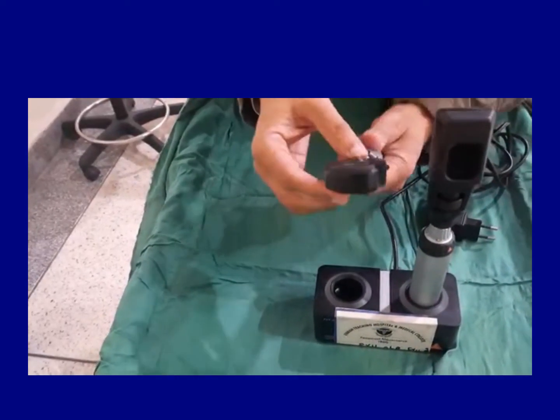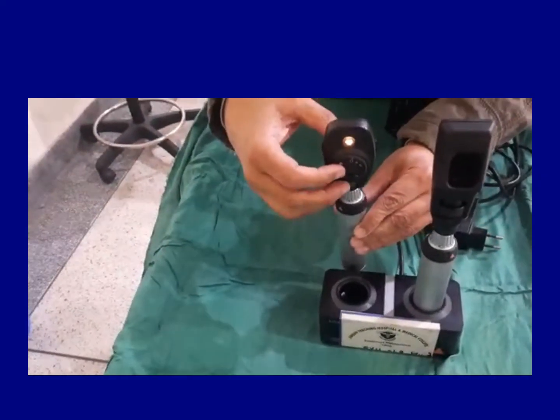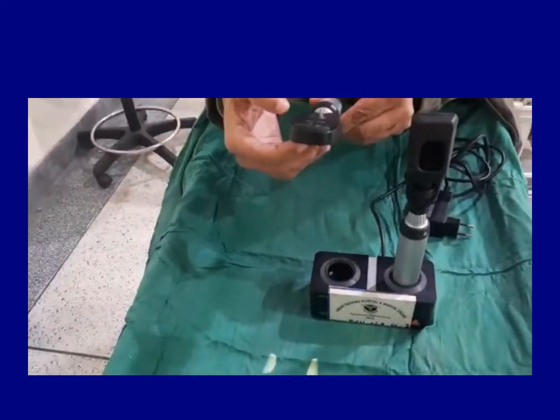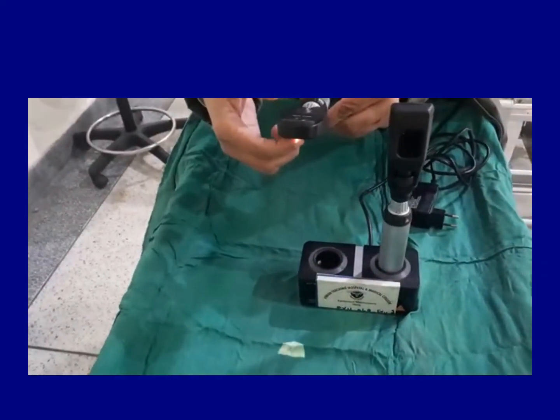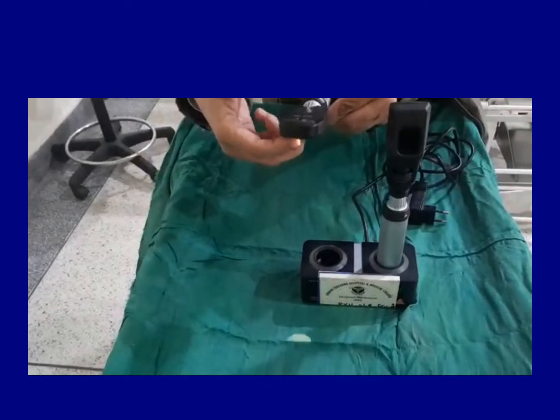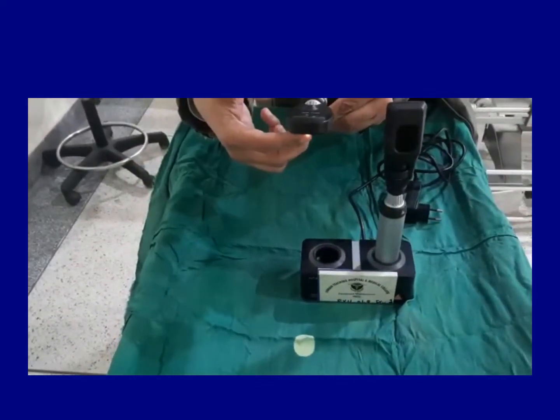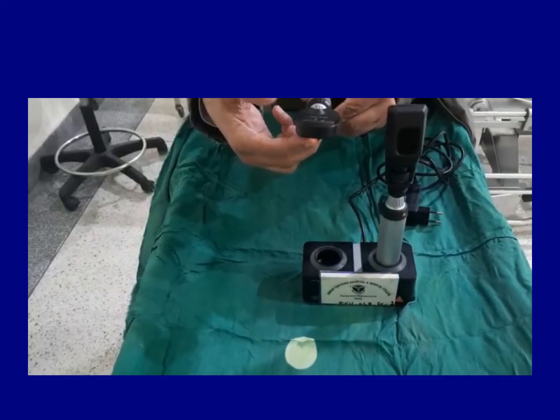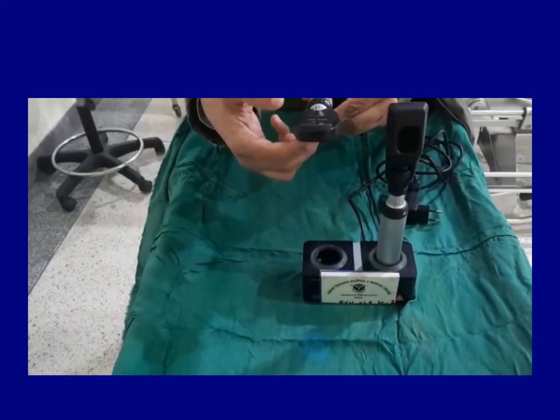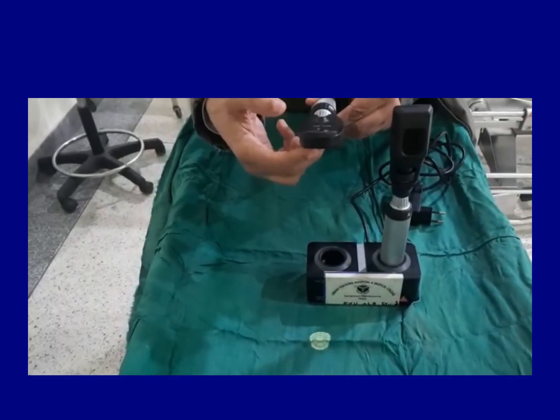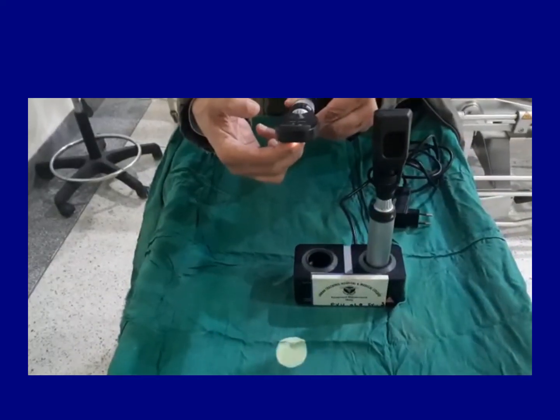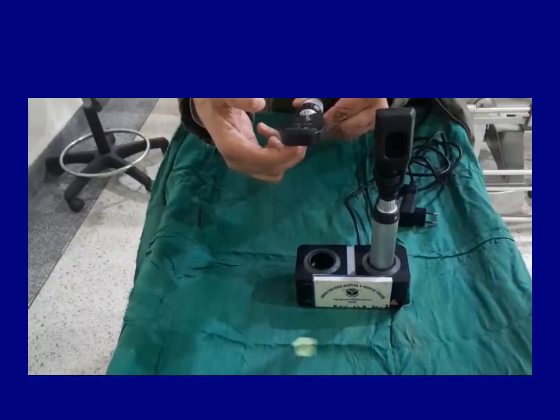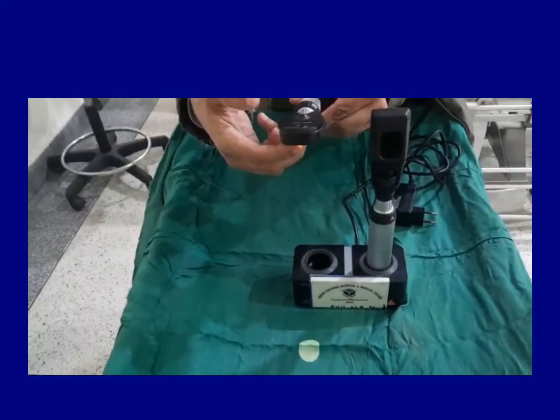Then is the dial over here and I'm going to turn this dial and look at the light here. Small circle, half circle, then small circle, then big circle, then the blue light and then the grid one. The big circle is used when the pupil is dilated and the small circle is used when the pupil is not dilated.